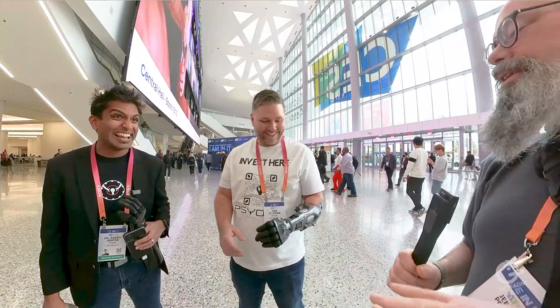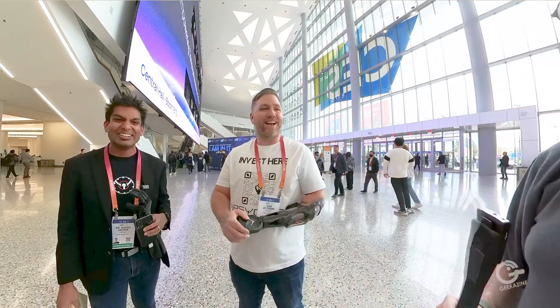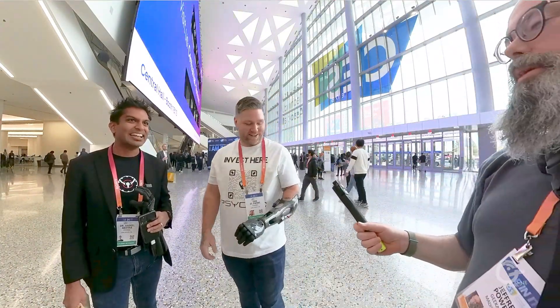Other hands would have broke. You did the fist — can you do a chop? We haven't tried it, but we won't do it today. We can come back next year with it.